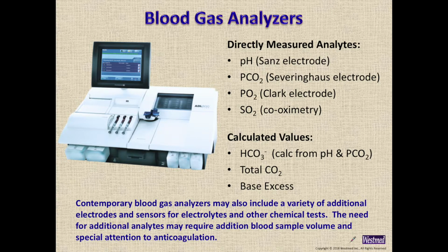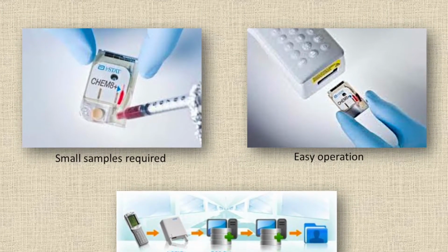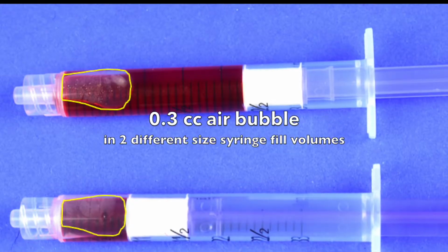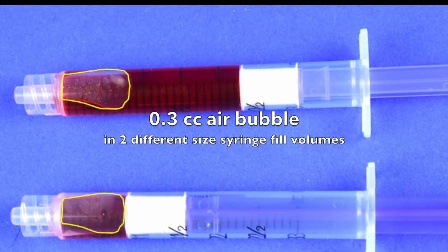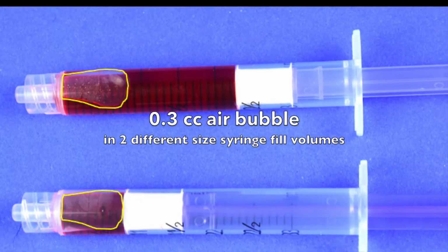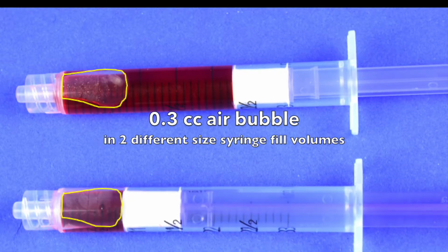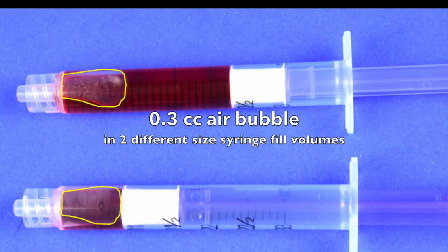Many contemporary ABG analyzers and point-of-care devices only require a few tenths of a cc of blood. And in the dramatization shown in this picture, the syringe on top has a 3/10 of a cc air bubble in it, which occupies a small amount of the total sample size. The syringe on the bottom has a half cc of blood and the same 3/10 of a cc air bubble.